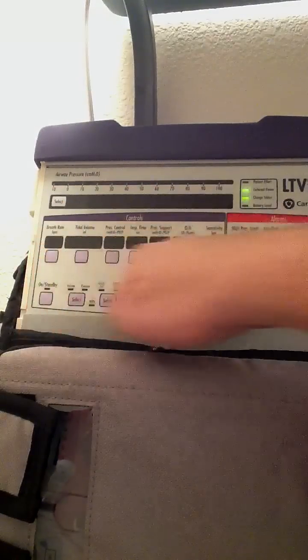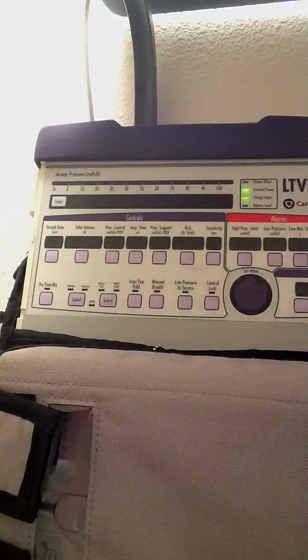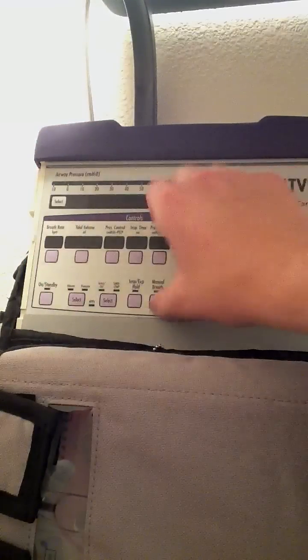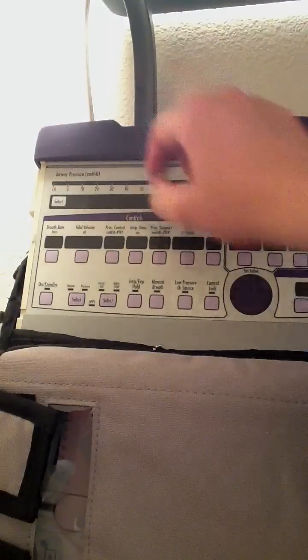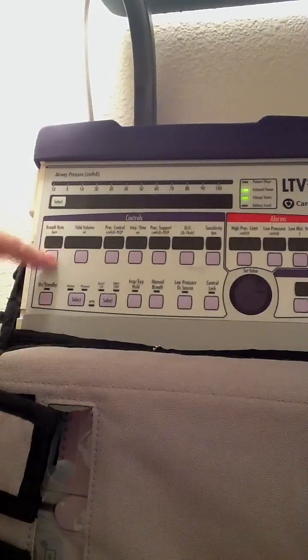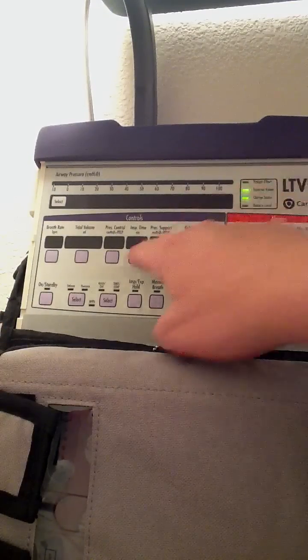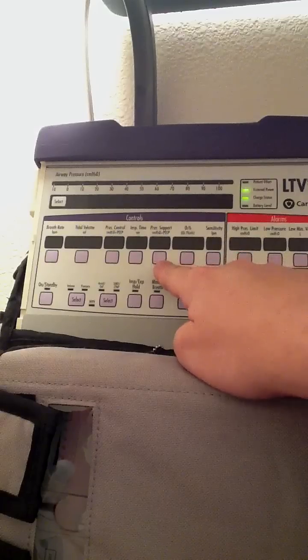This little blue area here corresponds to this little blue area over here — this is stuff that we set. So this tells us about the patient, and these are controls that we set in the ventilator. You can see I have my breath rate, my tidal volume, my pressure control if I do pressure control ventilation, my inspiratory time, and my pressure support if I have SIMV.